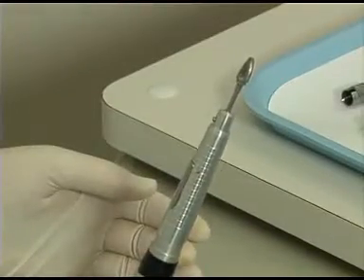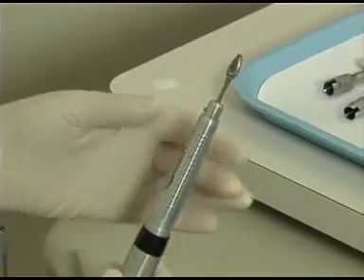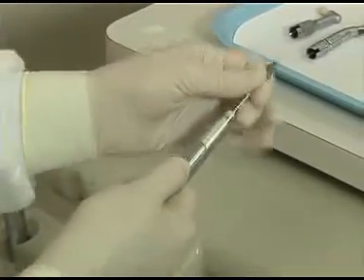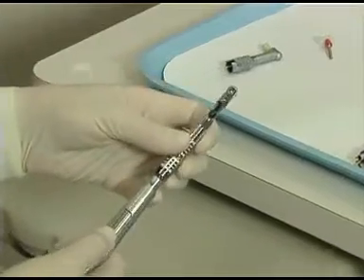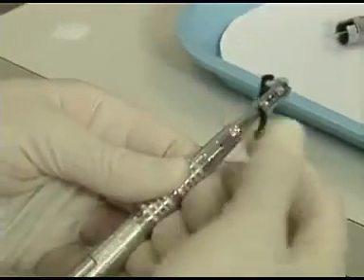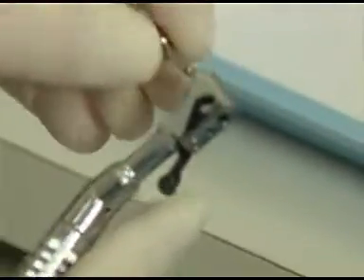There are several types of attachments that can be placed at this time. You can place a long shank-type burr, which is utilized for laboratory procedures. A contra-angle attachment can be inserted to hold many latch-type rotary instruments, such as a polishing disc.